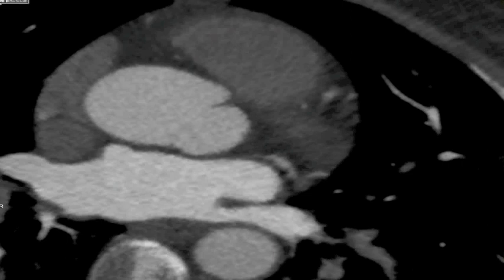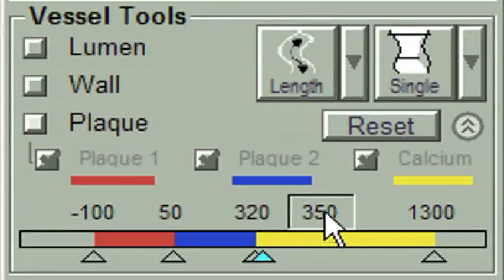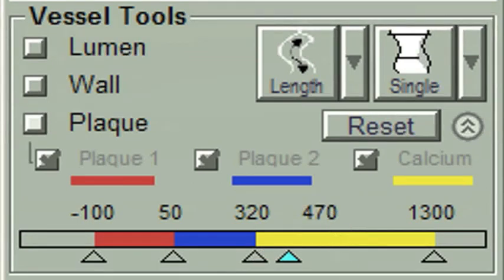The problem seems to occur from the way the Vitrea software deals with differing contrast densities, and we can usually fix it by changing the default value to the density within the aorta minus 40. Here we measure 510 HU in the ascending aorta, so we replace the default setting to 510 minus 40, which is 470 HU, and most of the time that'll improve the accuracy of the plaque measurement tool.